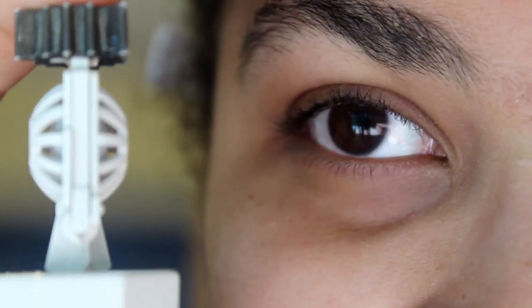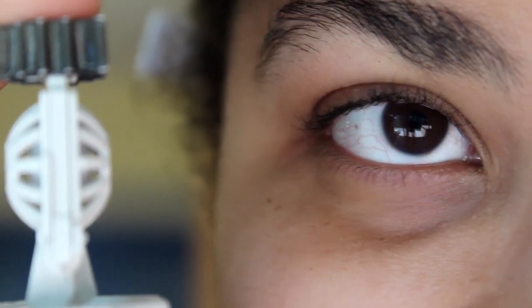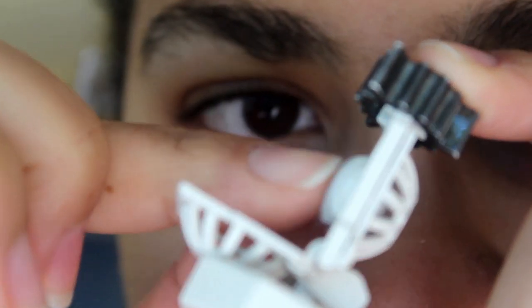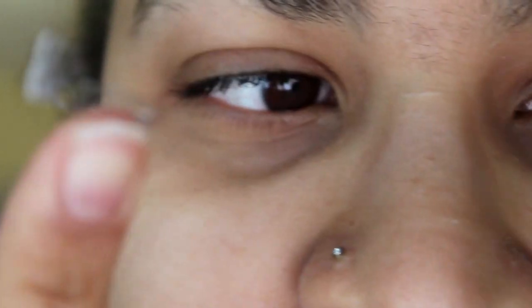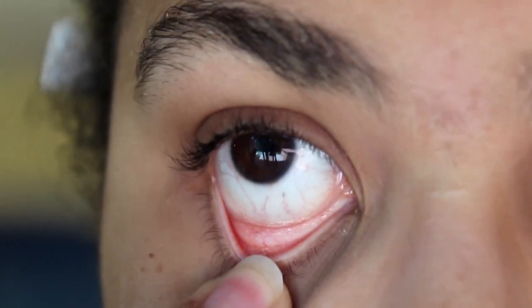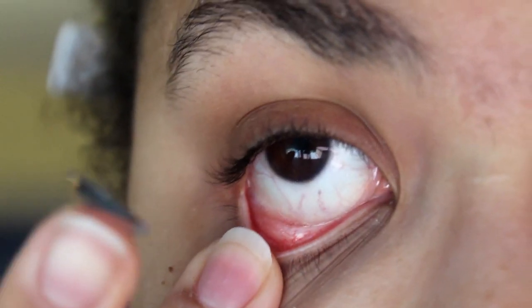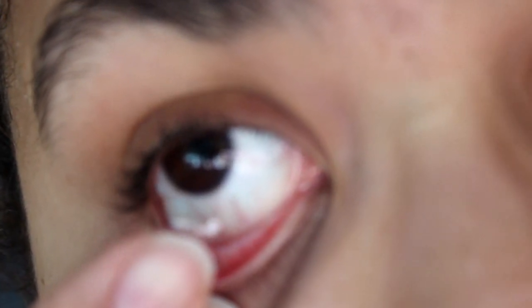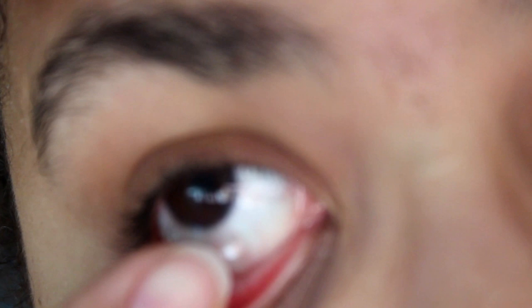I won't use any mirrors, so if I mess up it's because I have no help. I'll take it out of the case here. So here it is. Now what I do is I kind of do this. I usually have a mirror on me. I'm literally looking at my viewfinder right now because I have nothing helping me.